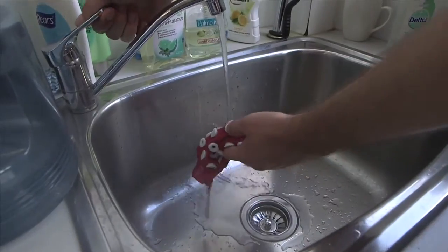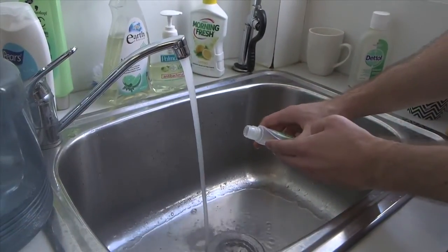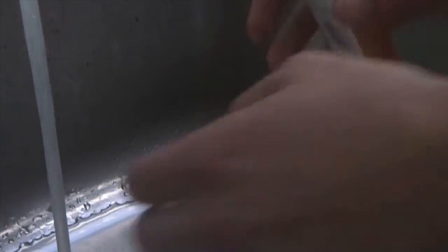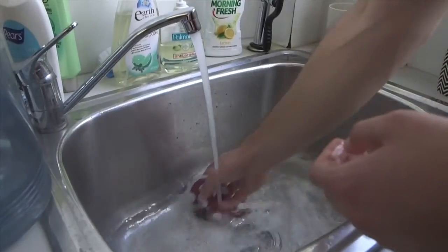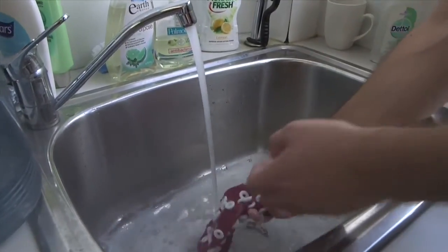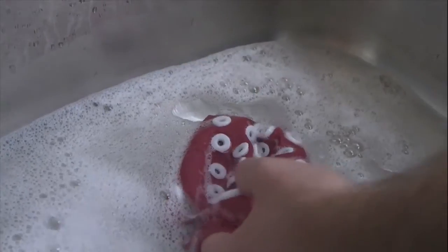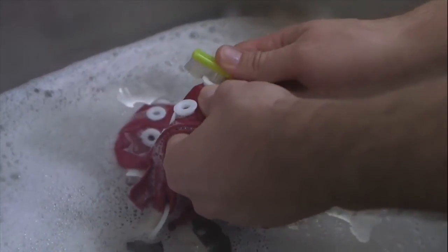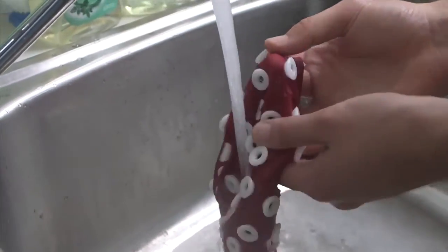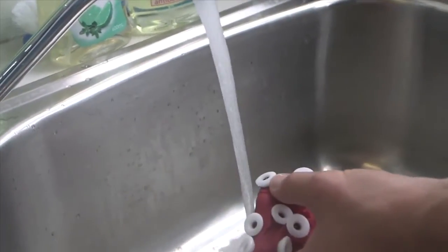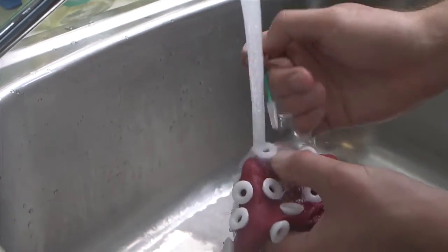The cap can be cleaned with regular tap water. Use warm water mixed with a small amount of Dettol. Using too much Dettol can cause the stickers to rub off, so be careful not to use too much. You can also add a bit of dishwashing liquid. Clean each hole of the cap with the small brushes provided. Be careful to ensure that there's no leftover gel in any of the holes. If you prefer, you can also use a toothbrush. When you rinse the cap, double check to make sure that there aren't any holes with any leftover gel in them. If there are, clean them again.